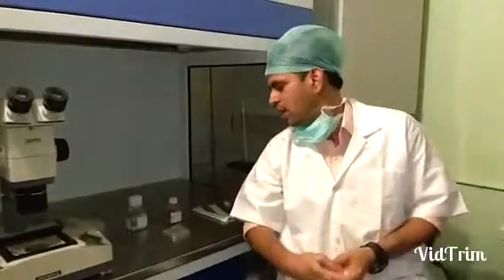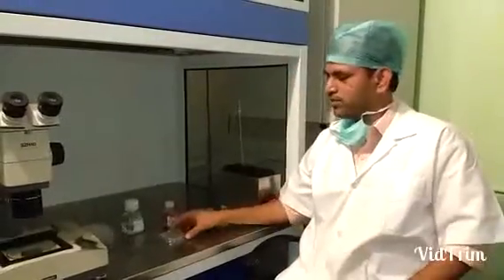When we are preparing the dishes, there are a couple of things which we need to strictly follow. One is that we should prepare only one patient's dishes at a time rather than preparing all of them together, to avoid any sort of confusion. We should always have the patient's file with us when labeling the dishes, which will help us to avoid any spelling mistake. We prepare them under a clean air workstation to avoid any sort of contamination.